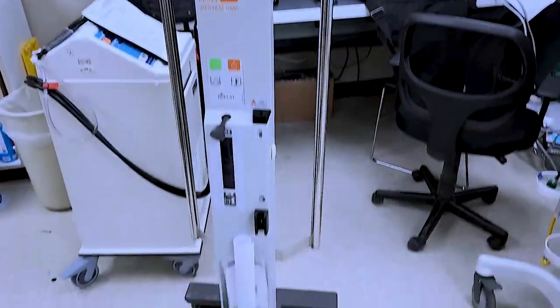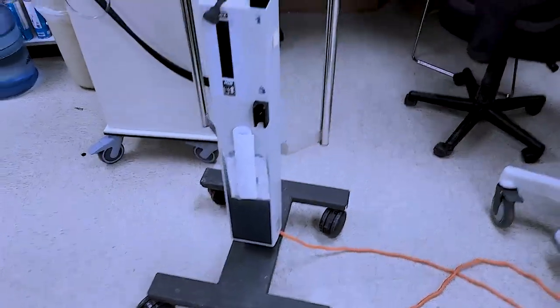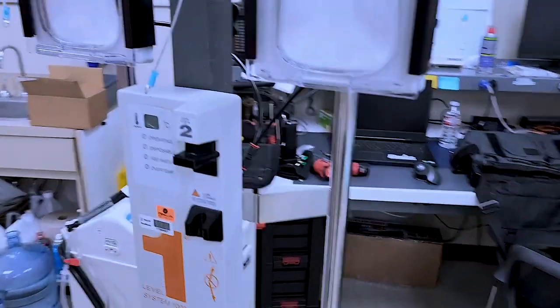Okay, the Level 1 is mounted on its own base and comes with a pole. It's got a wheelie base and it is attached to these arms.